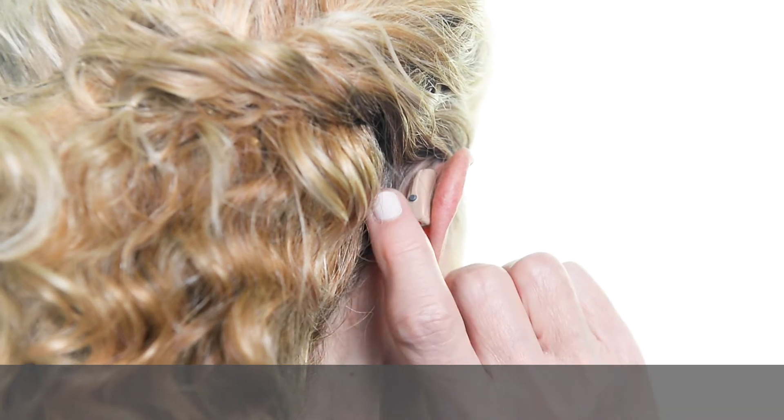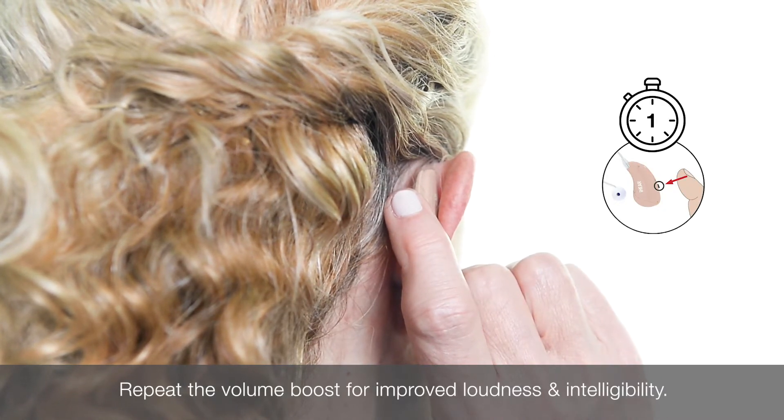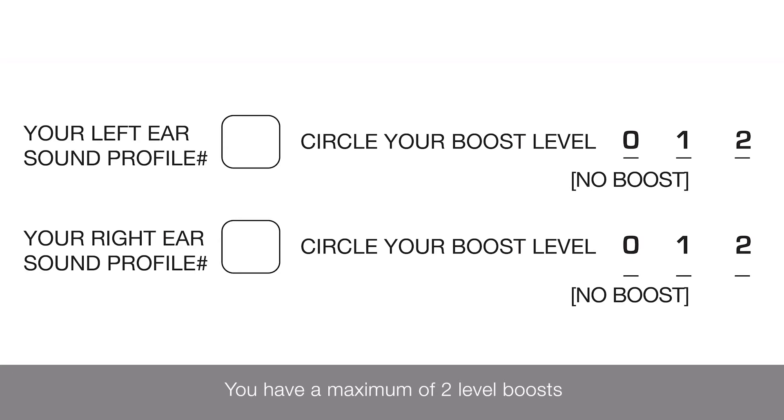Repeat the volume boost for improved loudness and intelligibility. You have a maximum of two level boosts. You will hear three beeps when maximum volume is reached.